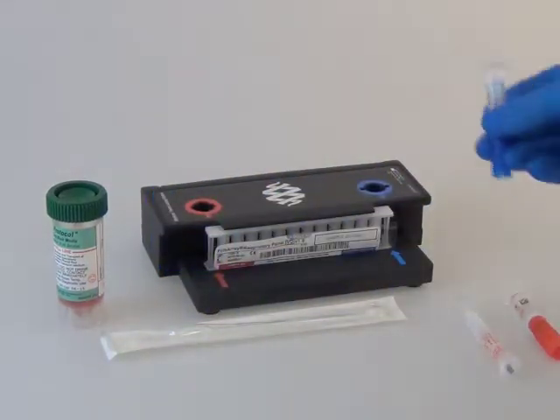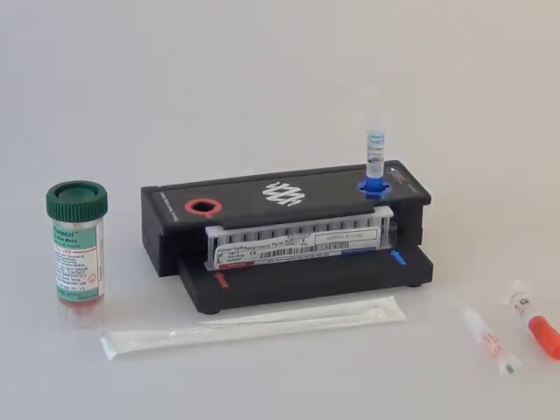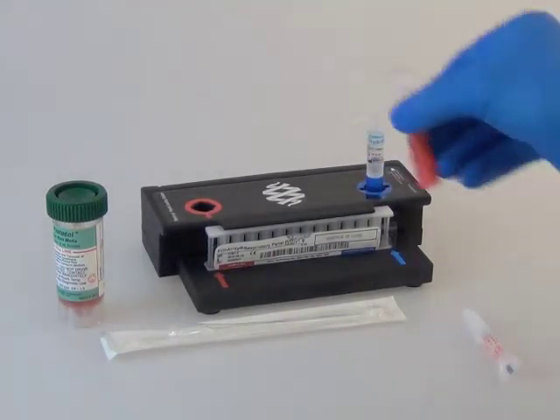Place a hydration injection vial into the blue well, and place a sample injection vial into the red well.